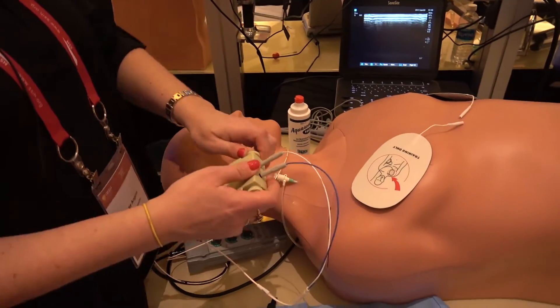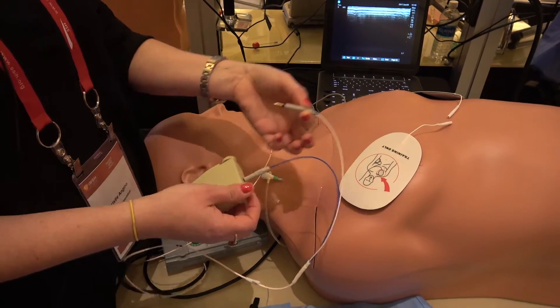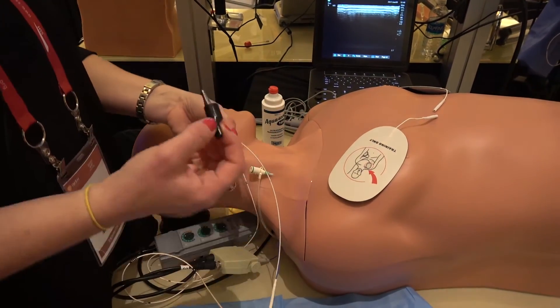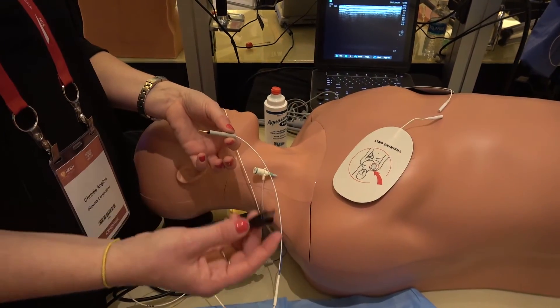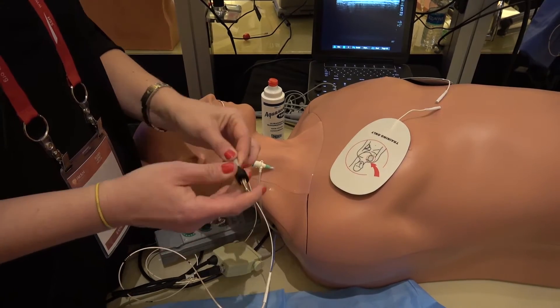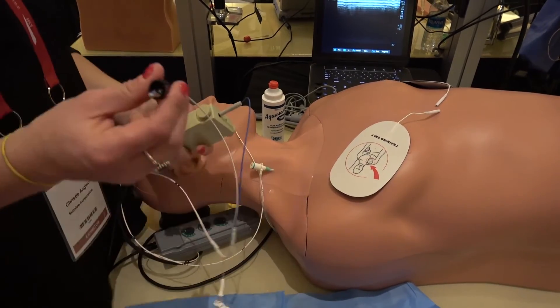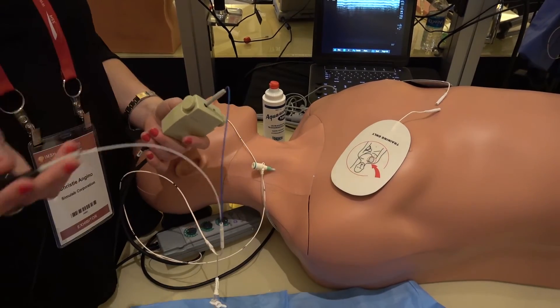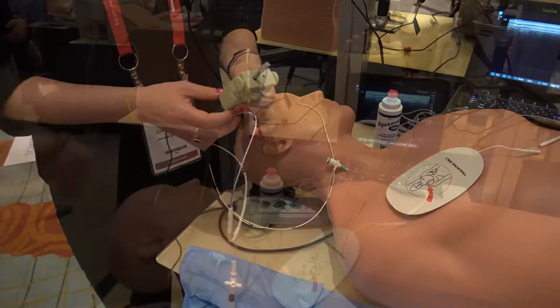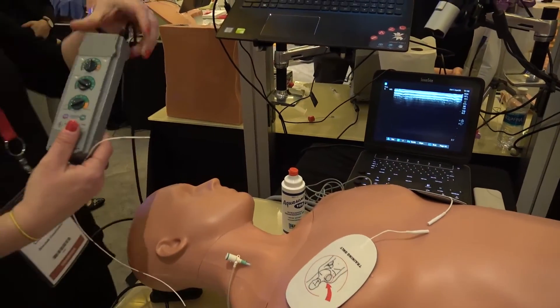For the EKG-guided insertion, we're going to remove the distal pin, connect it to the alligator clip that comes in the kit, and then simulate connecting this to your V1 or V2 lead of your EKG machine. In this mode, the pacing wire becomes an antenna that maps the location of the tip to our EKG strip.